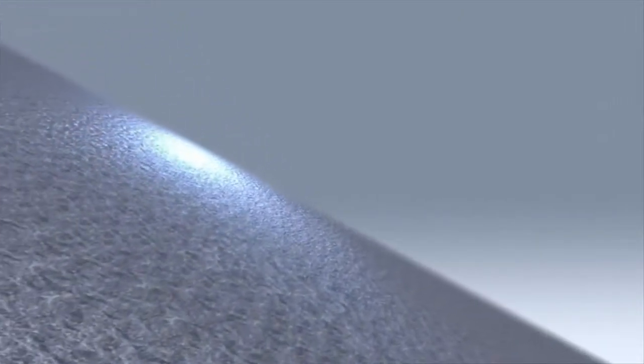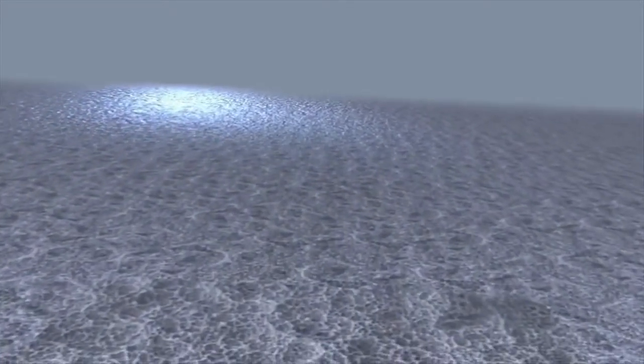Recognized for its microstructured osseoconductive SLA surface, Straumann introduces a type of implant surface that fundamentally improves the osseointegration process.